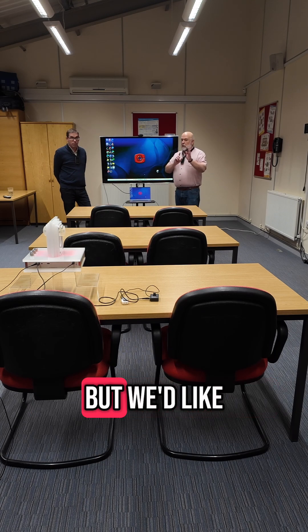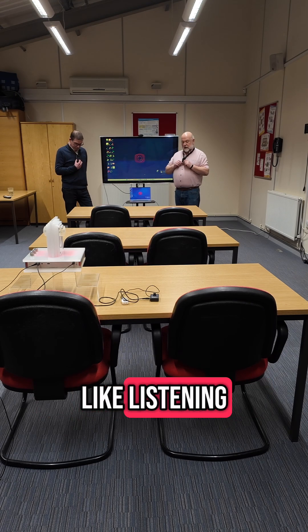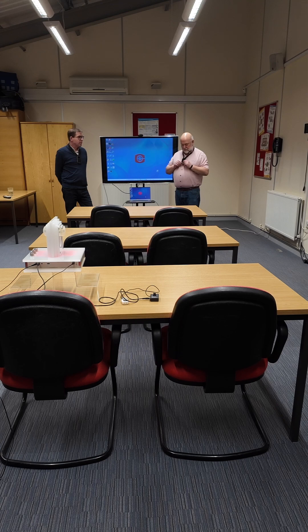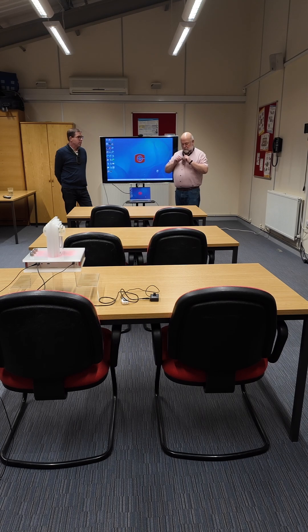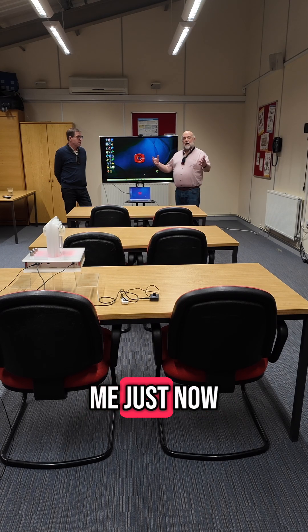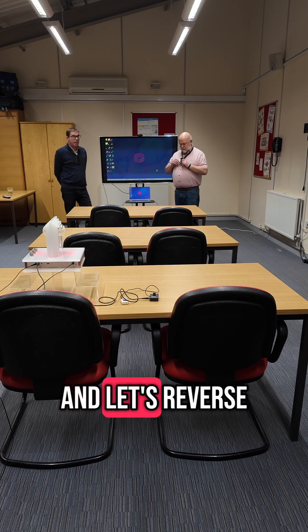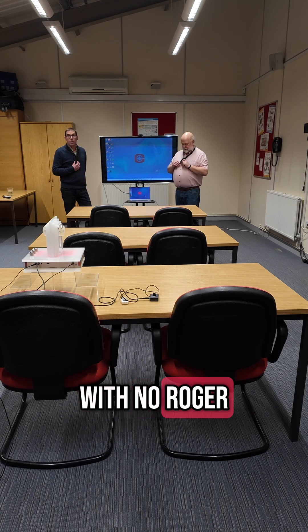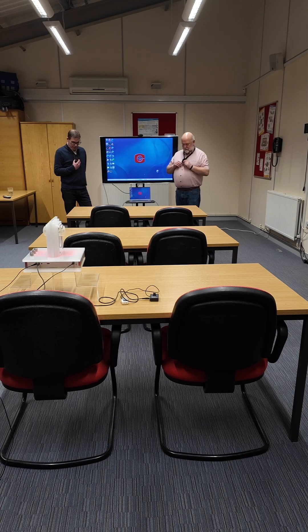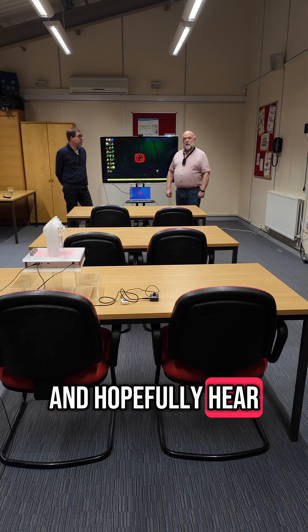So this has been a very simple demonstration, but we'd like to catch you out. We're going to turn our transmitters off just to remind you what it's like listening. Can you hear me? Now we're talking to you with no Roger system — and let's reverse that. Talking with no Roger system there at all. Hopefully you won't be able to hear the sound there at all. Unmute that. You should be hearing my voice coming back again, and hopefully hearing my voice as well.